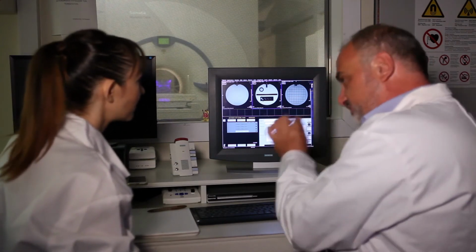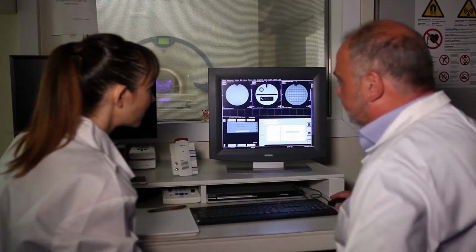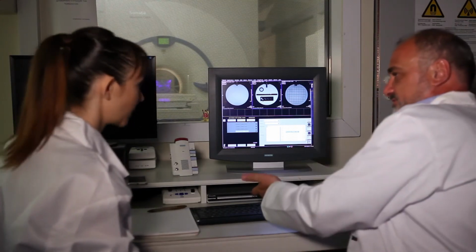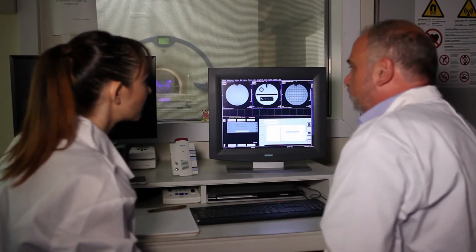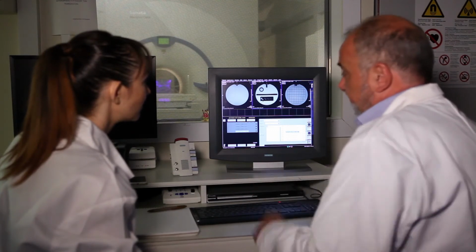So I've chosen a specific point in space, and I'm viewing specific structures on an image. This is the first image of the series, the first image of the 11 slices. The second is this, not an issue. The first image, I'll explain. You can measure a lot of things here, I'm going to show you. Second, it's not that important.